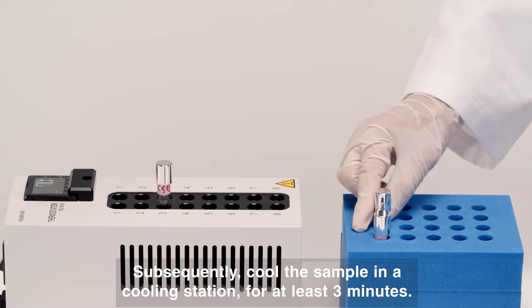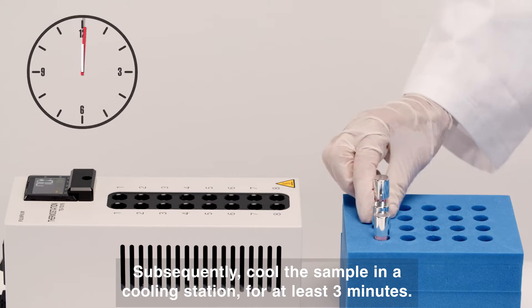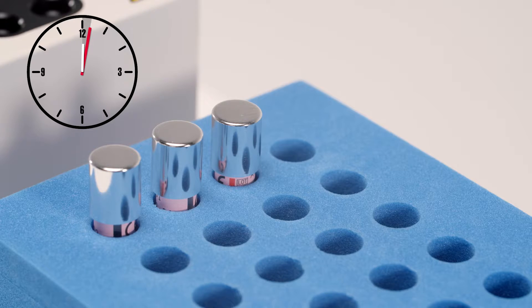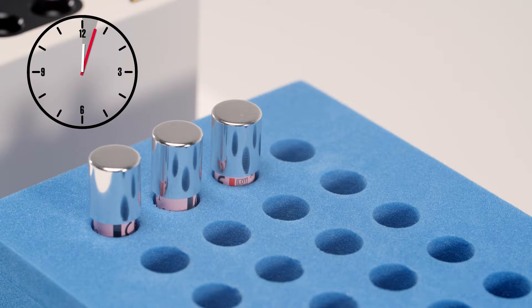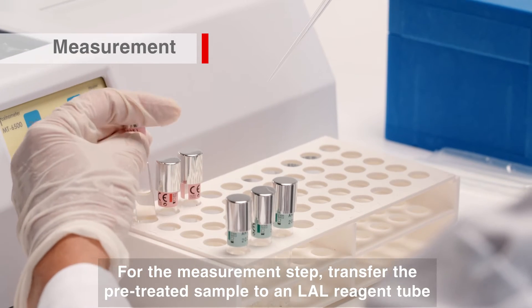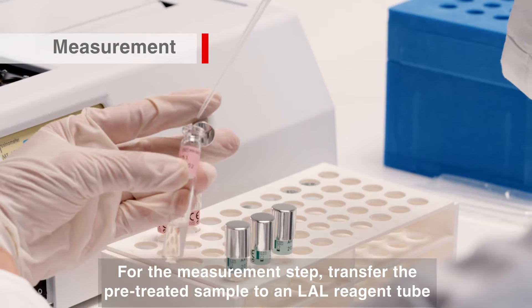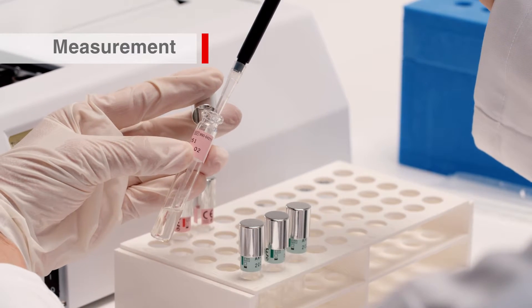Subsequently, cool the sample in the cooling station for at least 3 minutes. For the measurement step, transfer the pre-treated sample to an LAL reagent tube and mix it gently.